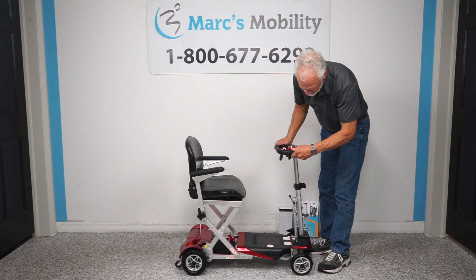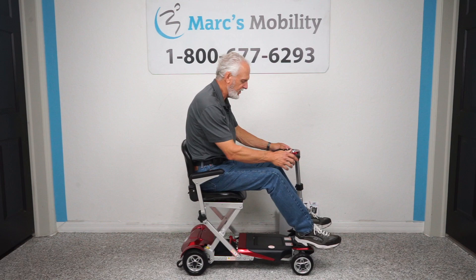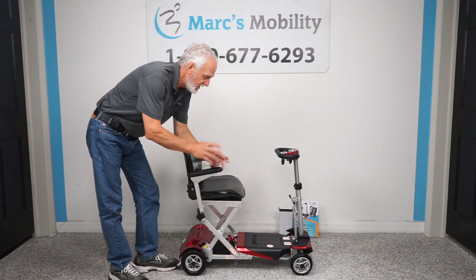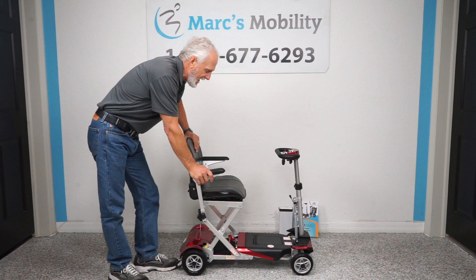You also have a horn. When you're sitting in the scooter, this is one of the few where you can put your feet all the way up to here. There is a spot for your feet right here and it's all non-skid, so your feet don't slide. The scooter weighs 55 pounds if you take the three pound battery out; if you leave the battery in, it's about 58 or 59 pounds. The heaviest piece with the battery out is about 55 pounds.